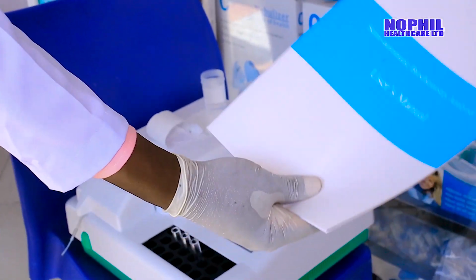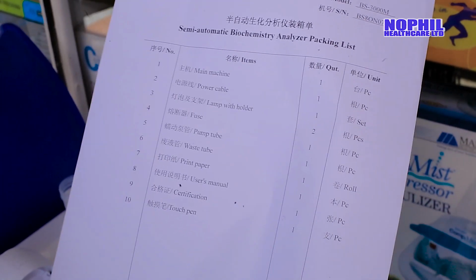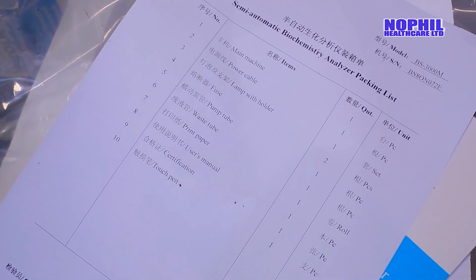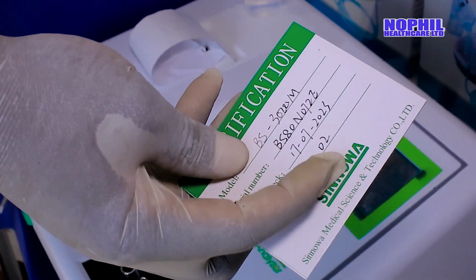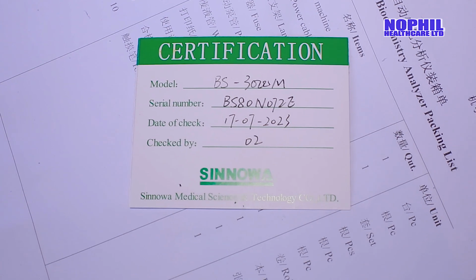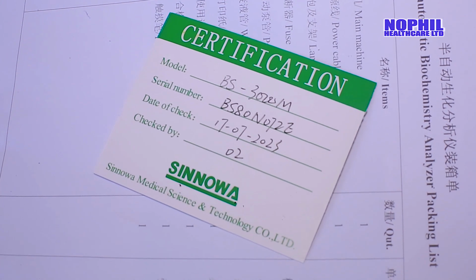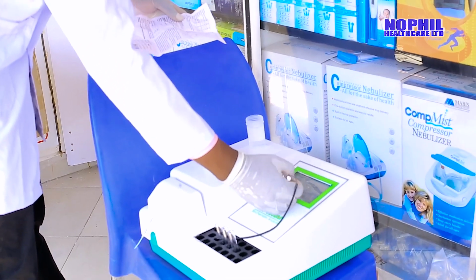In this one, you find it in the user manual. The machine is ISO certified and it comes with the certificate. You can see the checklist. This is the user manual, as you can see. It helps the user to know how the machine functions. It also comes with the checklist, which is certified for what the machine comes with. This is the checklist and the serial number of the machine. On top, the machine comes with the warranty certificate. As you can see, it has a warranty of 2 years. Within the warranty, we can support you technically for free without any charges, using our factory-trained engineers who will help you do the various calibration and quality control to ensure that you get accurate results.